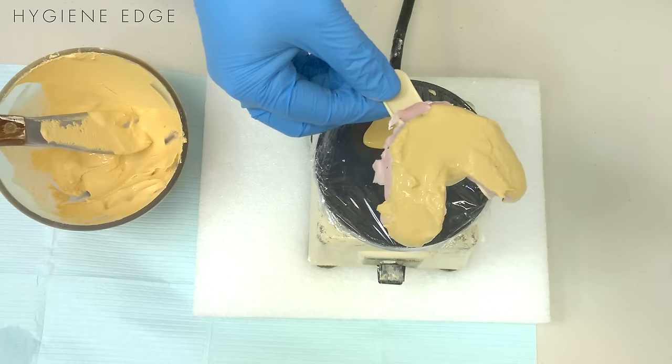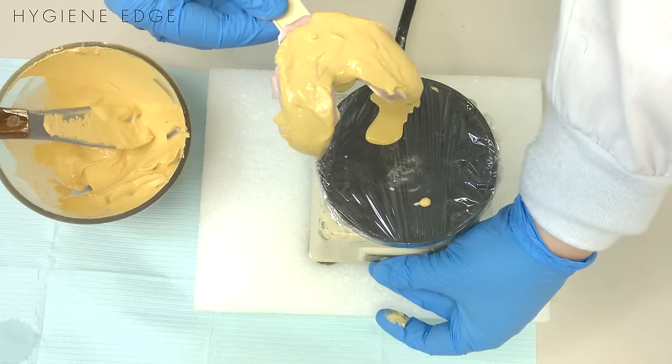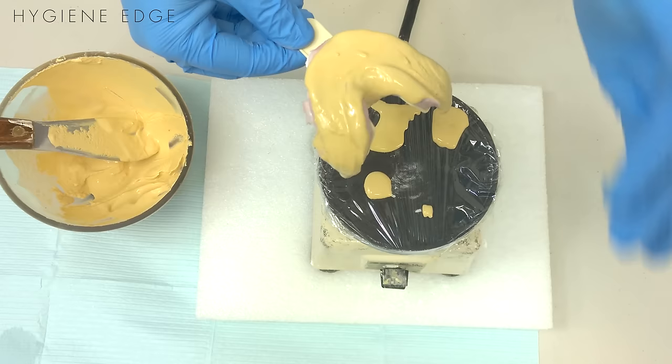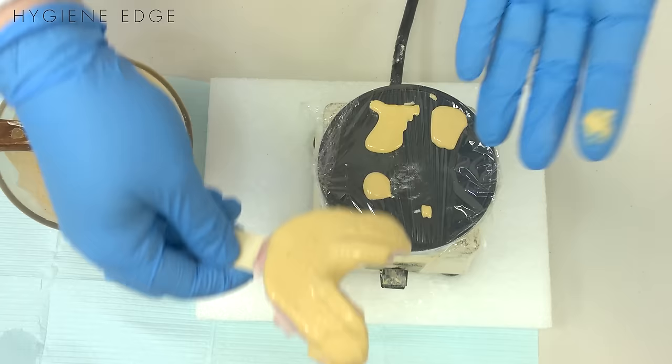And if you really want it to look good and smooth on the top, you can dip your finger in a little bit of water and rinse off the top just a bit. Or you can turn on your vibrator to the lowest setting and just do a little dot to fill in any little hole between your first layer and your last layer.